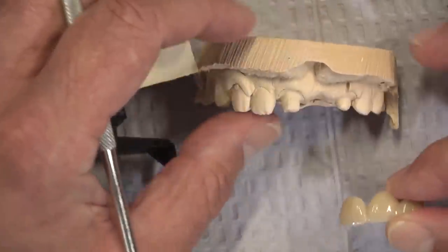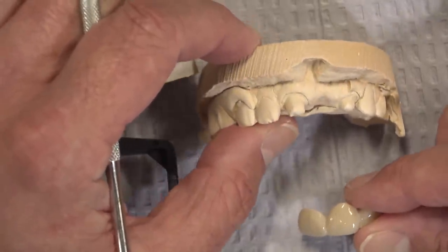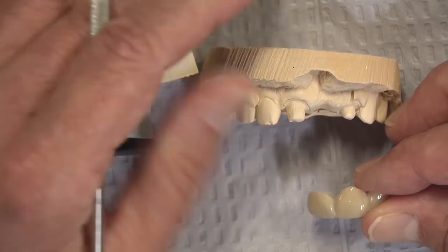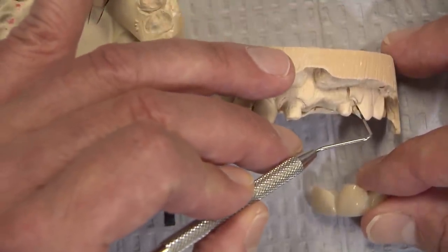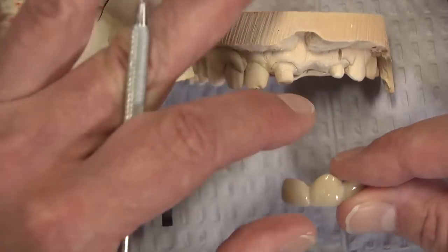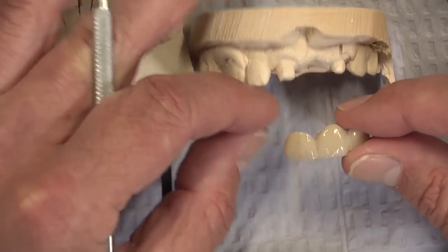That's going to be about as strong as you can put this on. It's hard to say whether or not it will be enough without lengthening that lateral incisor, but that's where our no-fault remake rate comes into play. It's nice when it falls off and you don't have to cut it all the way off — although last time it did take some tooth, and the doctor subsequently built it up, and we might be able to see that buildup line right along there. I would prefer to see this drop down sub-gingival here; I'm less worried about that than about this coming off this poor older gentleman again. Grab onto a little more tooth, and after trying it in, decontaminate it, use a zirconia primer, and put it in with the self-etching resin cement — that should give us our best chance for success.